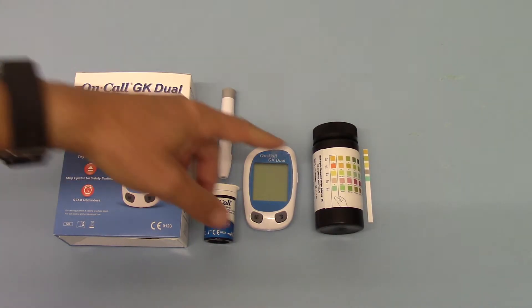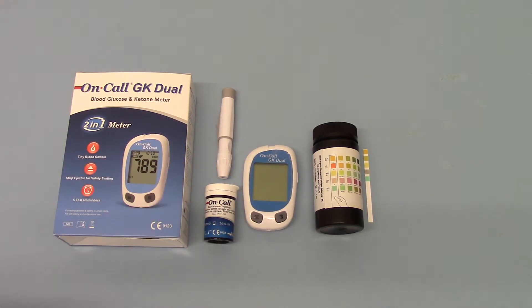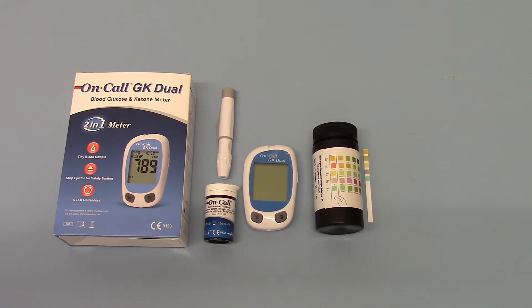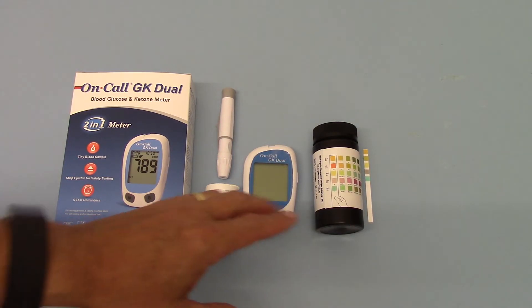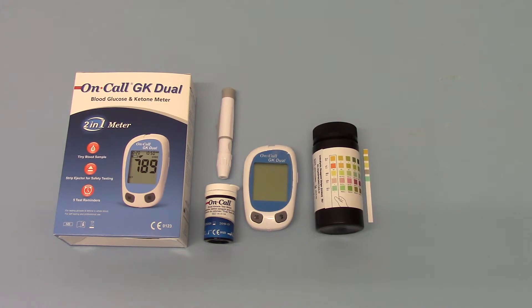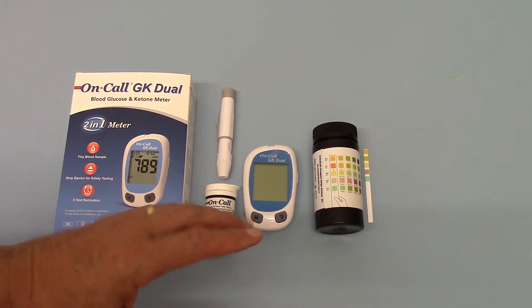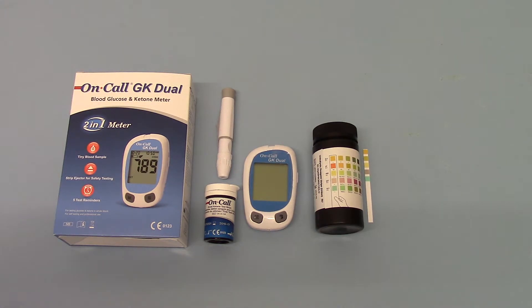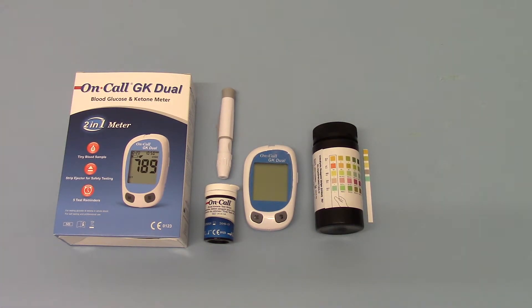Compare that to the cost of a 100-strip pack of ketone urine tests, which will be around £5 — you're looking at £2 for a blood level versus 5p for a urine level. So if you're a straight dieter looking to see if your diet's working and you're in ketosis, our advice economically is obviously go for the urine test every time.